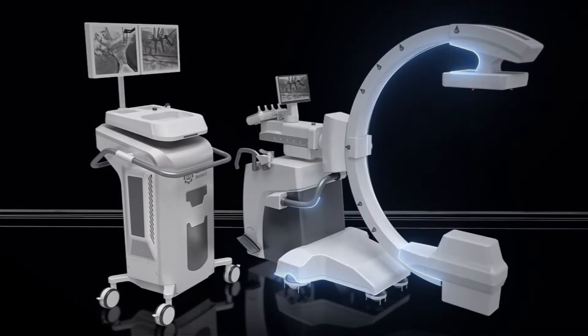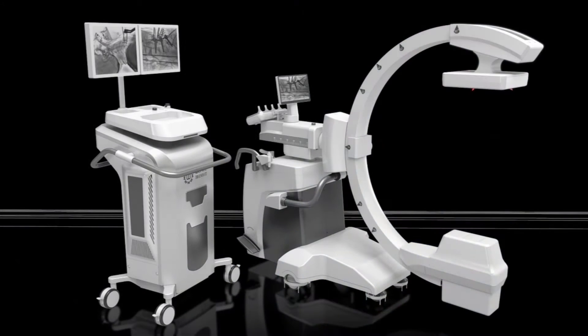Through technological innovation, process improvement, and resource integration, ElfinBot 100 adopts 5D motion all-electric control system.